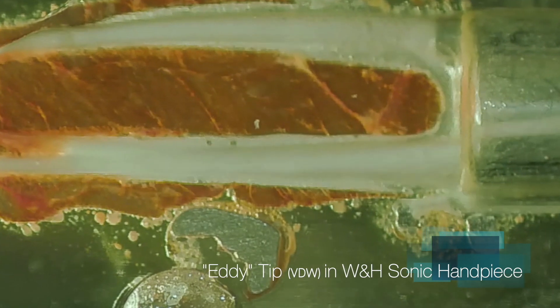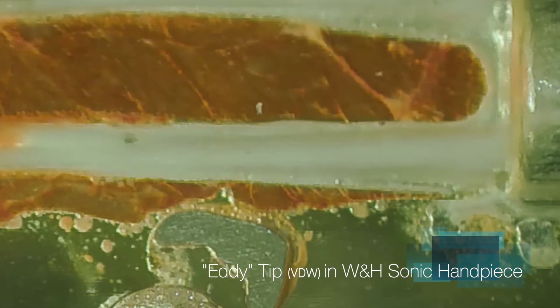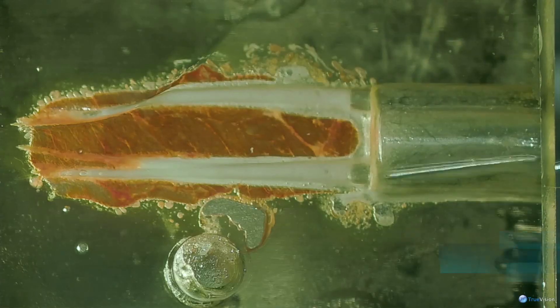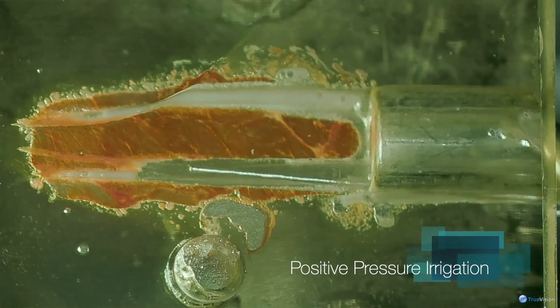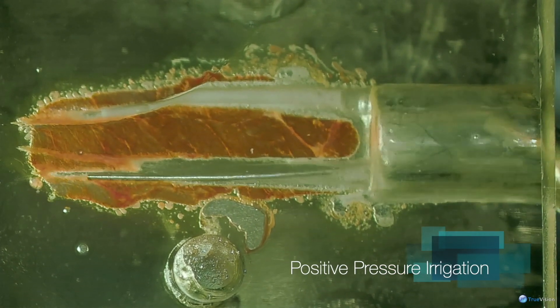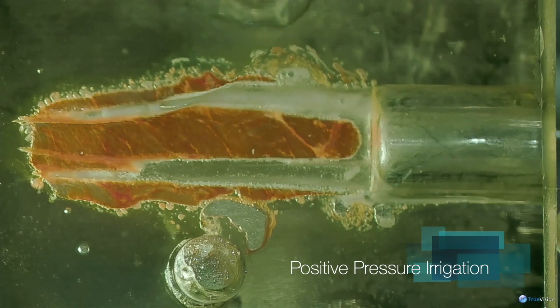Ultrasonics will have one or two nodes of resonance along its length, and that's the only place it's really stirring the solutions. With sonics, we see the entire length of this eddy tip affecting the solutions.